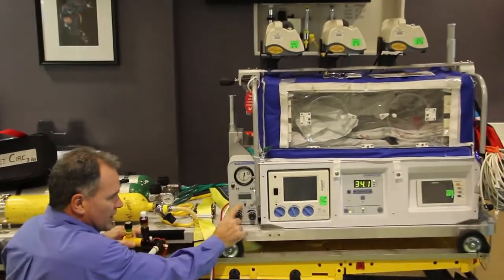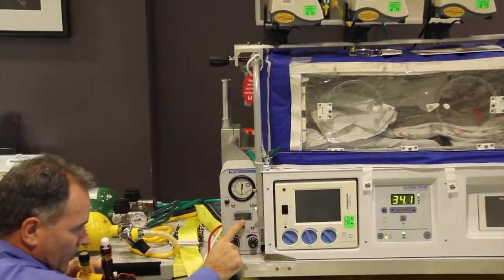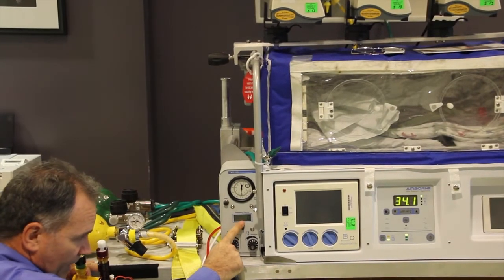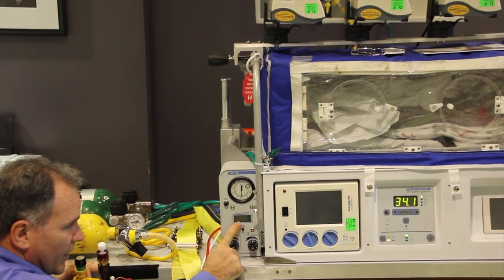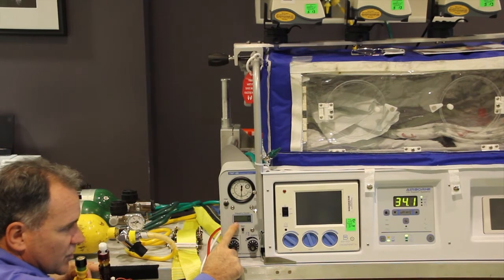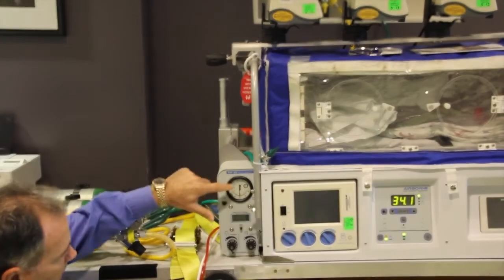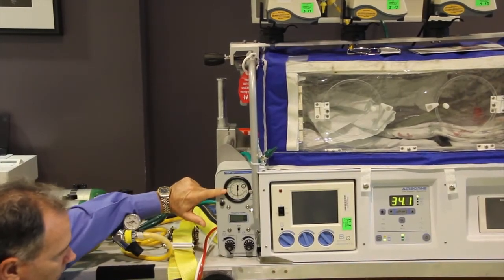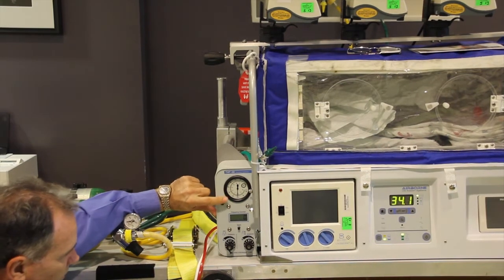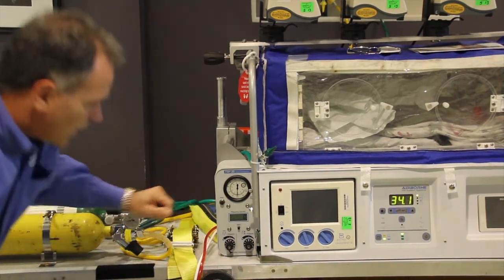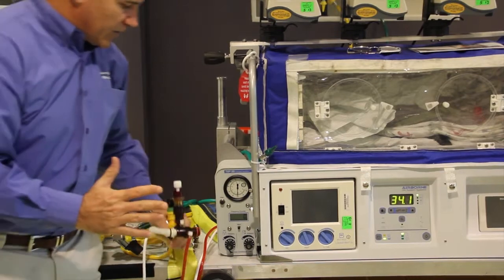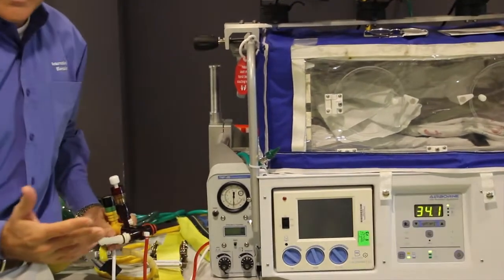The other is the frequency. In the frequency counter, which is right here, you push this button in and zero pops up. This button is only good for five minutes. There are four double-A batteries in here. This is the manometer here, and this is just a duct port to reset the manometer.